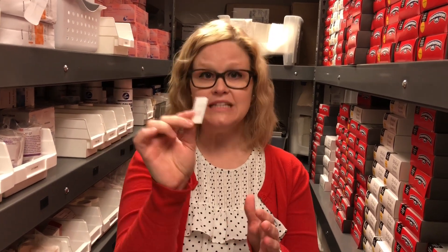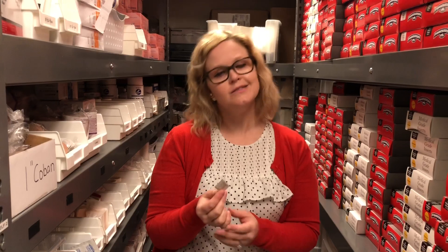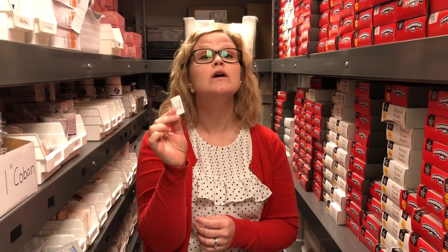What we do with this is test the feet in a couple of particular spots to see if the patient has point sensation. We're testing to make sure that if they're barefoot walking around the house, would they feel stepping on a piece of glass or would they not? Most people with diabetic peripheral neuropathy should not be barefoot in the house because they will not feel it.